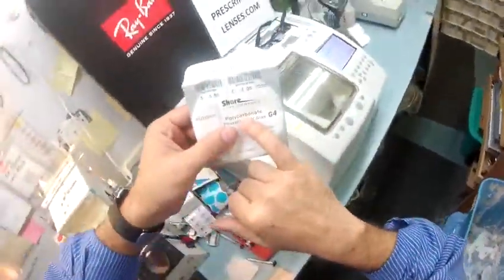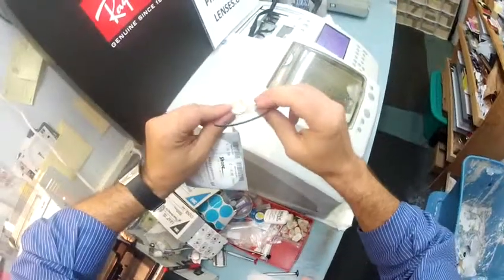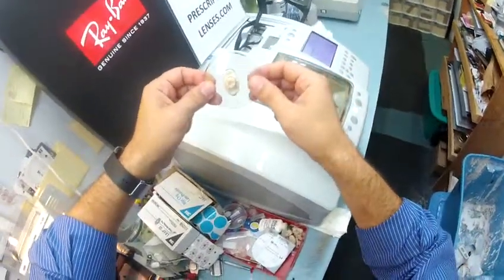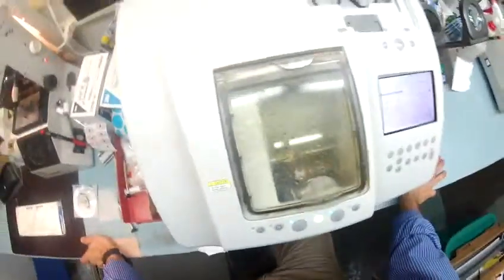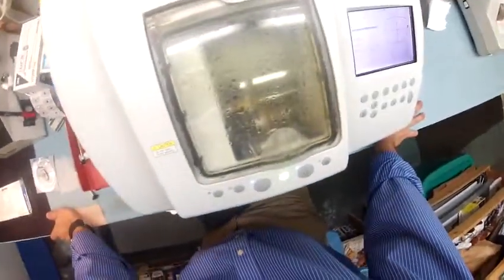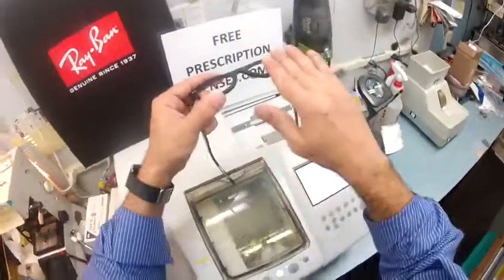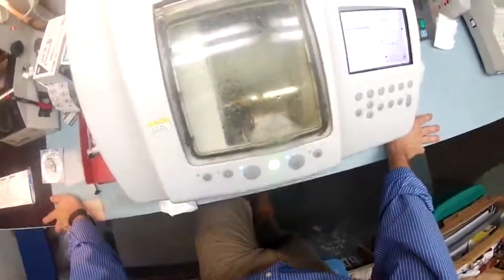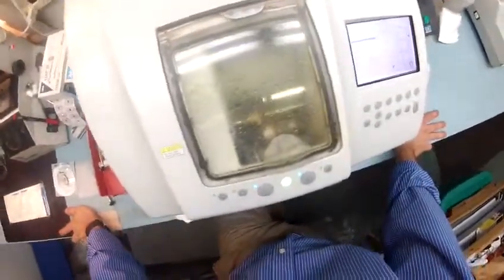Your lenses are polycarbonate, which is 40% thinner and lighter than regular plastic. They are virtually unbreakable — bulletproof up to .22 caliber — and have both UVA and UVB protection. We know what the sun's harmful ultraviolet rays can do to your skin. Your eyes are eight times more sensitive than your skin, so you will have permanent sunscreen for your eyes. Unlike lotions and creams that you have to constantly reapply, you will never have to do anything to these lenses. They're also aspheric, meaning a flatter curvature — no ugly fishbowl appearance you see out of cheap lenses. And down in Pflugerville, Texas, you get your own personal sun that follows you around all day.